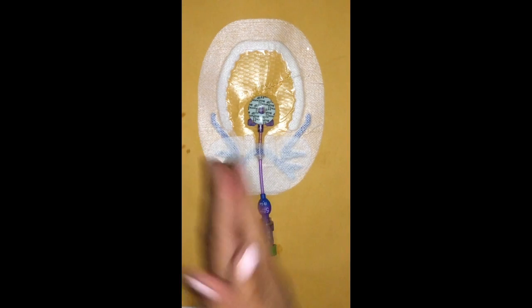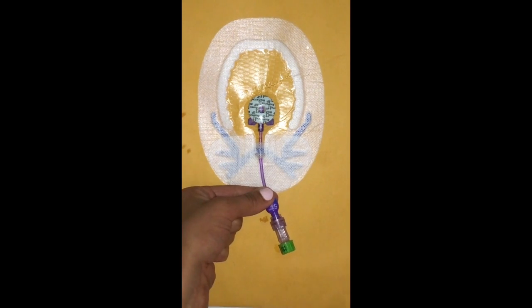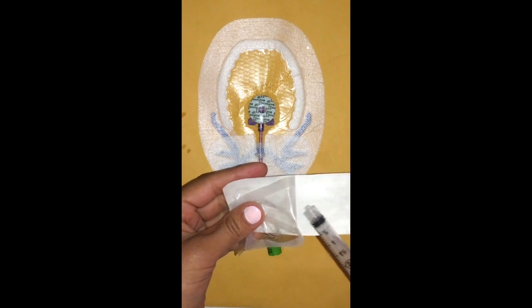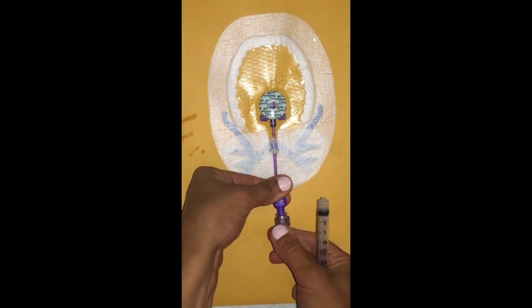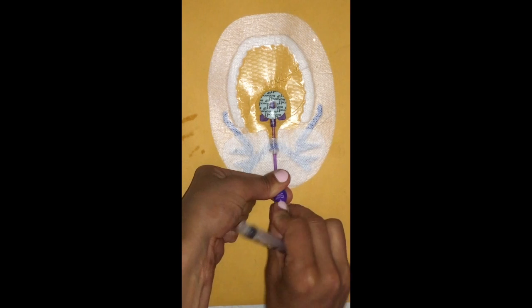So you will wash your hands appropriately, you will put on gloves. I don't have any, unfortunately, so for right now we'll just have to pretend. You're going to go to the infusion port you will use. You're going to open up your 3 ml syringe. Sometimes there's some extra air, so I push down on the plunger, expel any extra air. You're going to unscrew the cap. So you want to take it down all the way to the hub of your line. Swab with alcohol.